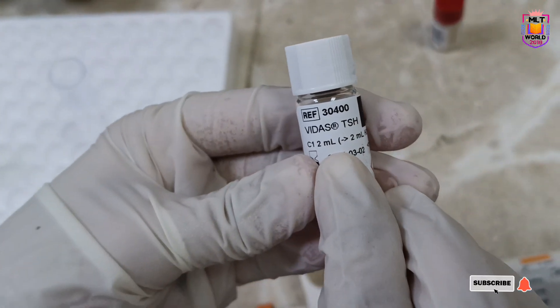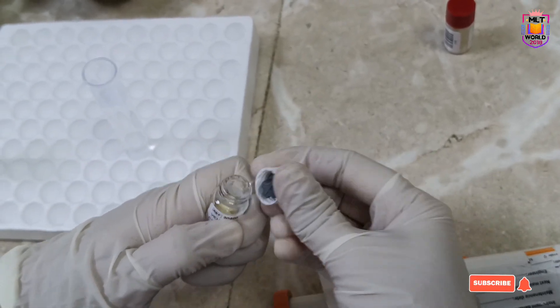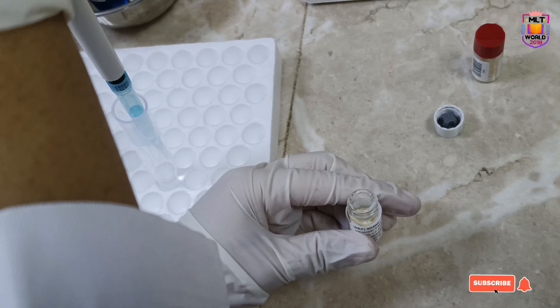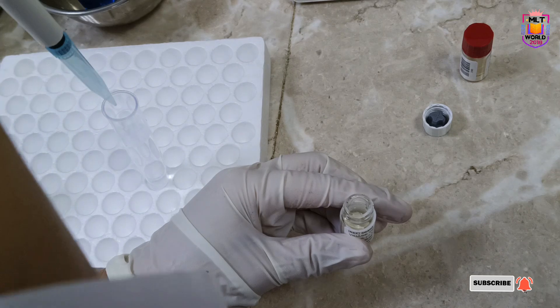When we add the water, we need at least 20 minutes to mix properly. In between, you can mix a little and keep it straight, mix a little and keep it straight, but give at least 20 minutes for exact mixing.